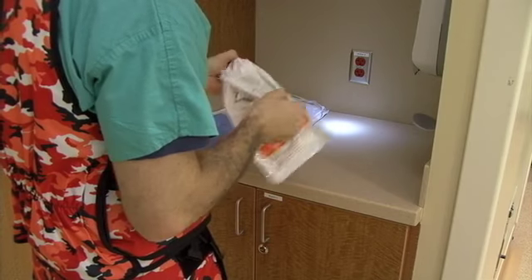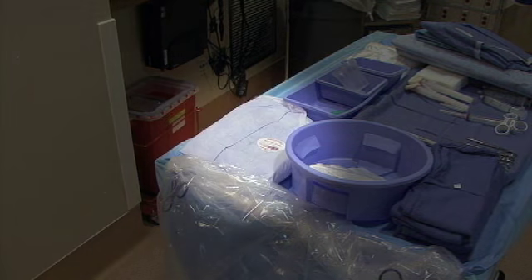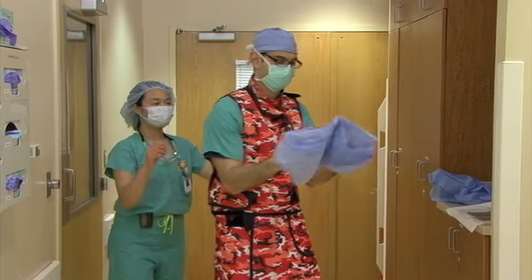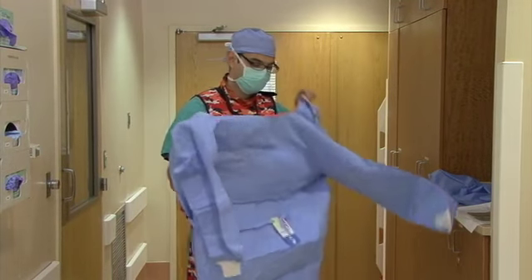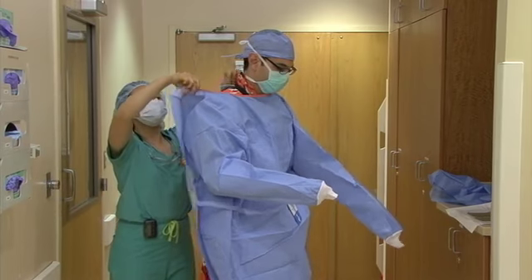When you are beginning a case, you will want to first get your gloves and open them. Then you can get a gown either from the back table or from the shelf. If you are taking the gown from the table, be very careful not to contaminate the table with your hand. Once you have your gown, you should find an area where you have some space around you. Then you can splay it open and get your arms in the sleeves.